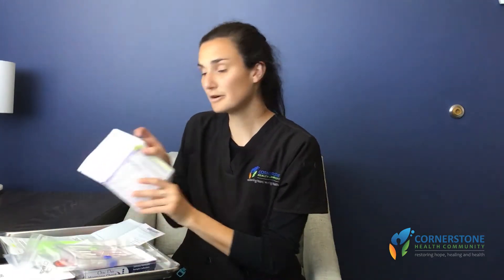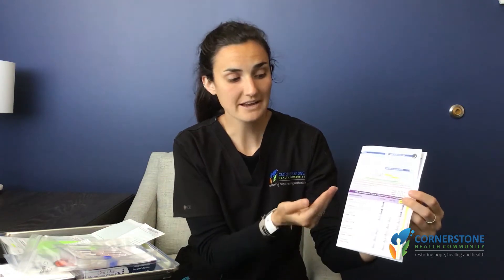When beginning this collection, refer back to the instruction sheet — specifically the far right column of the seven vials. You'll start when you wake up with the waking collection time immediately upon getting up, then move to 30 minutes later, and continue throughout the rest of the day. The final collection is at 2:30 in the morning, which, although less than 24 hours from when you began, is technically the next day.